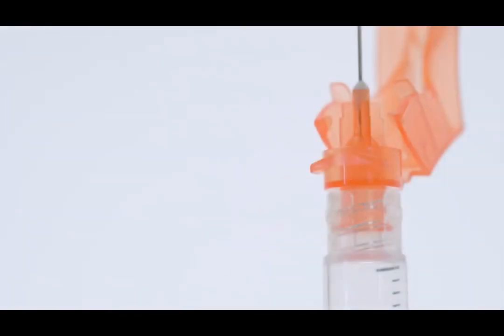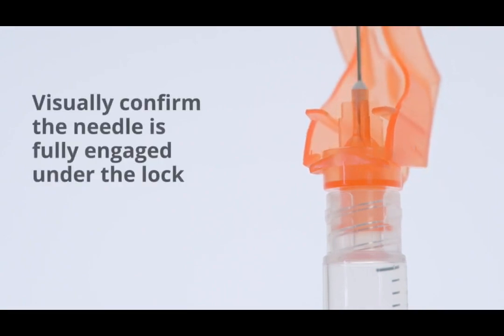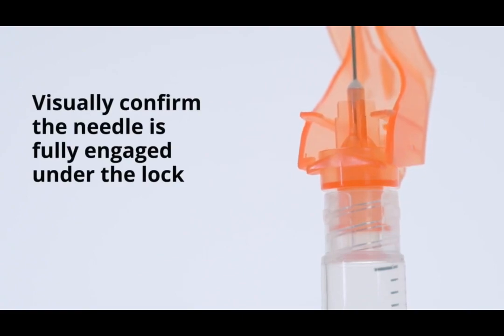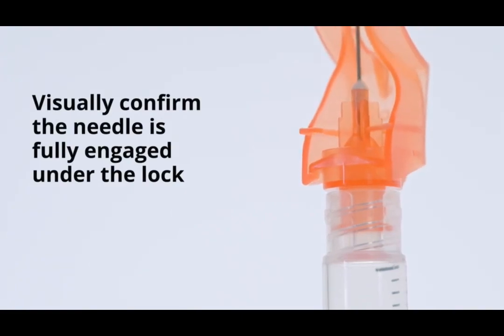The location of the lock will vary depending upon needle size. The audible click may not be heard on small needle sizes. Visually confirm that the needle is fully engaged under the lock.